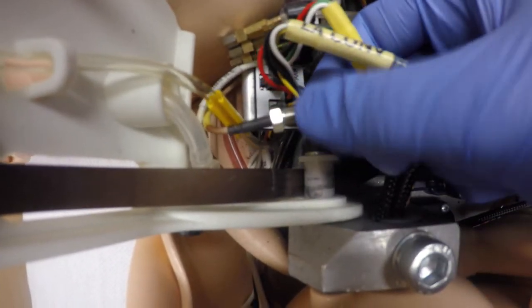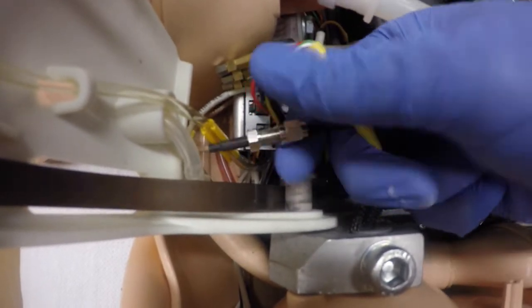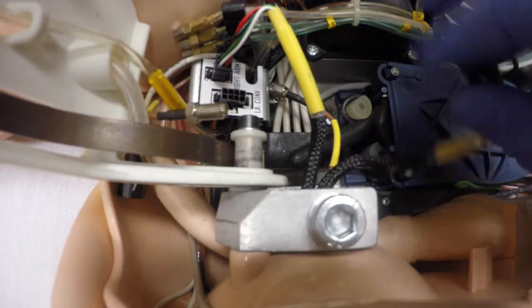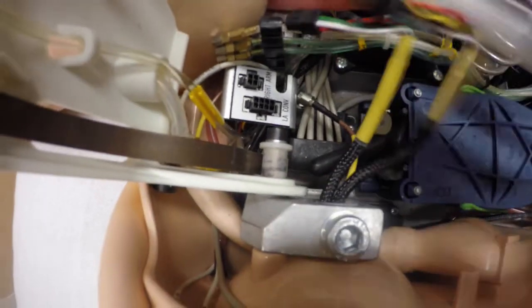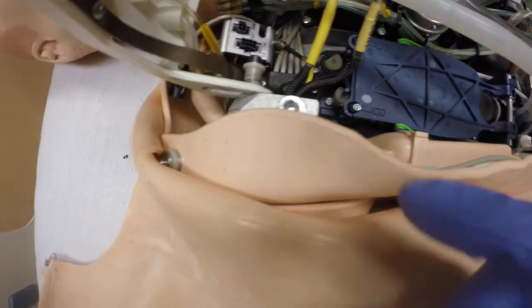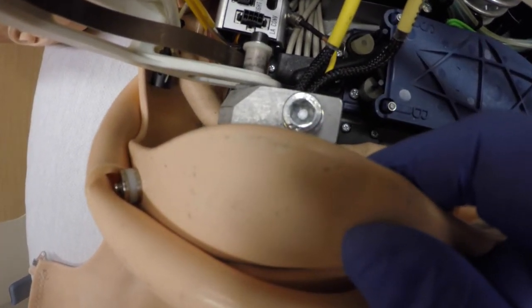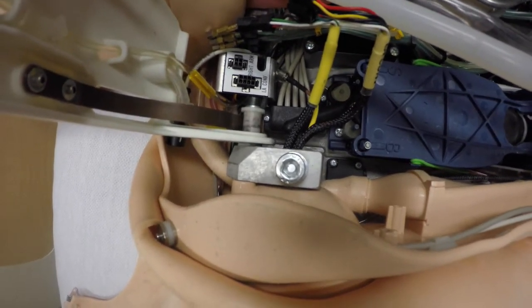We're just going to undo that. Now we're going to spin this backwards. Next to the clip — there's a little tab that you press down. Try not to wiggle it around because you can widen the contact points. Got those two out. Next thing we're going to do is remove this Allen bolt here to release the arm.